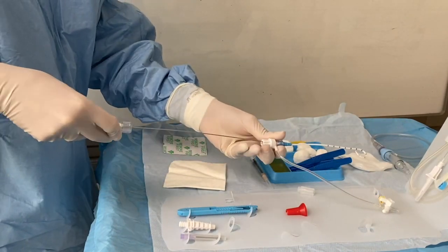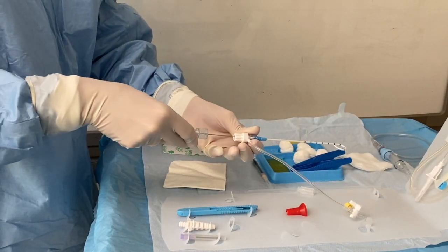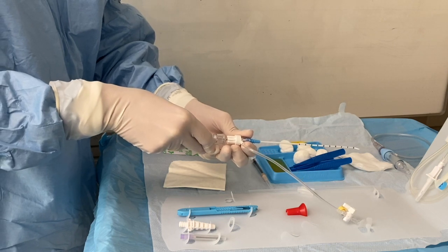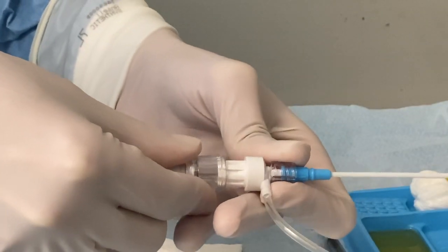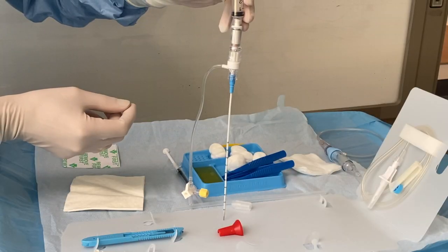Thread the introducer needle through the catheter. Make sure the introducer needle locks firmly with the threaded valve hub. Test the colour change indicator.